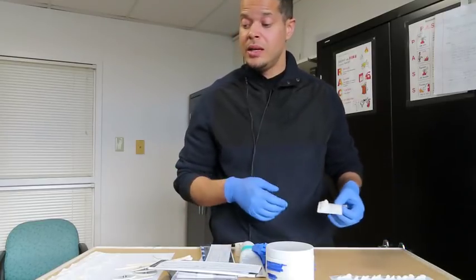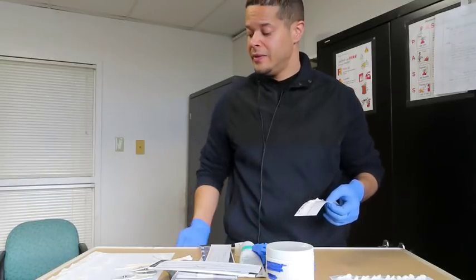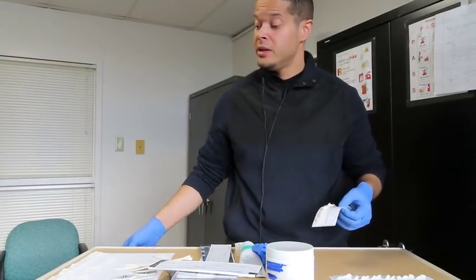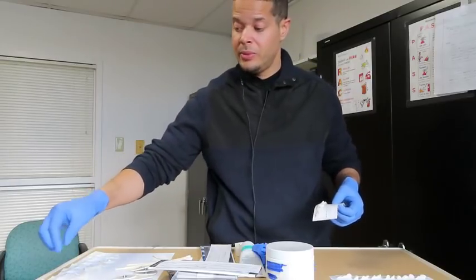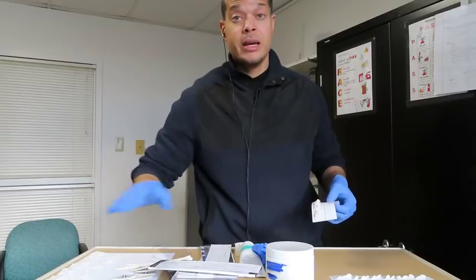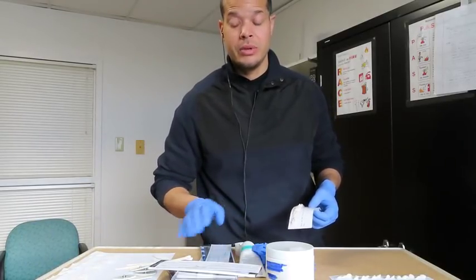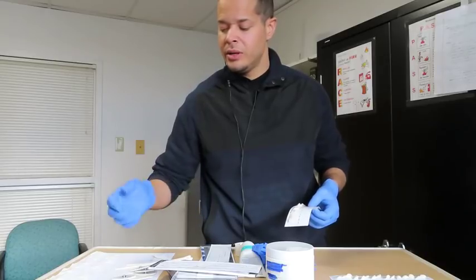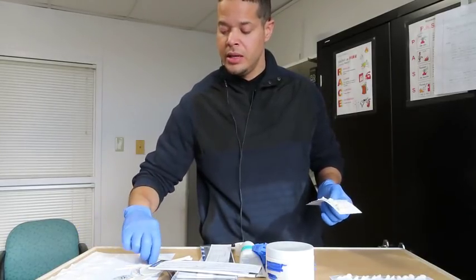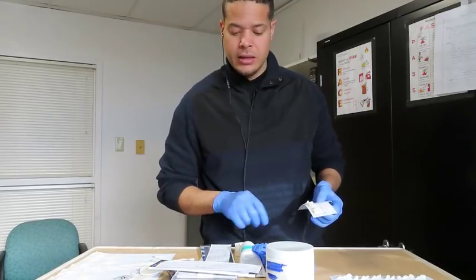So I usually come in, I pre-set up my whole table, I get everything together. I even have my tapes on the side here, a bunch of tape, a bunch of paste pre-prepped with the gauze pads. There's many ways to set up your tables and your trays. Right now this is just a basic type of setup. Depending on what your lab uses, the equipment determines how you set it up, and Q-tips to prep your patients.